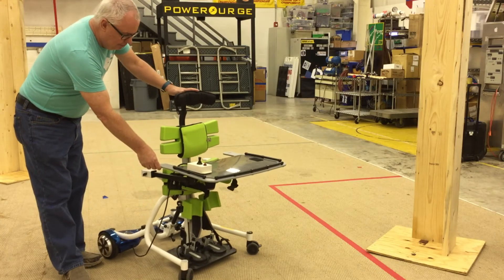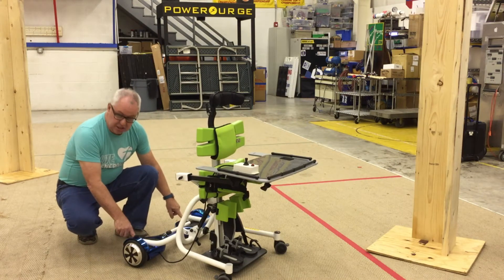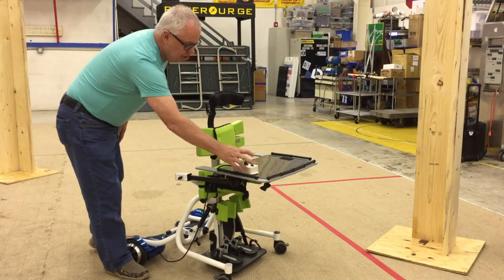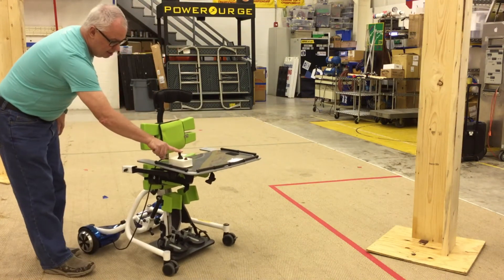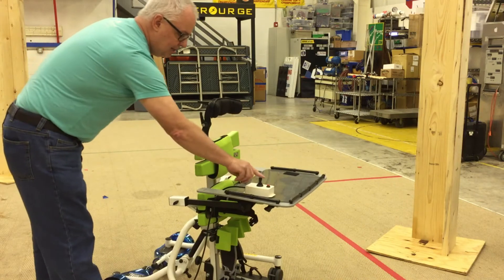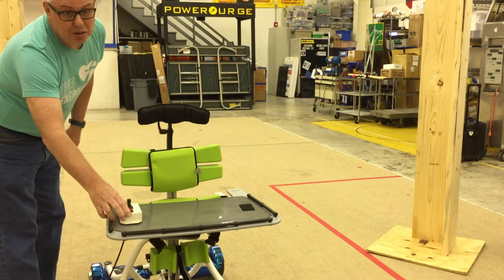For this prototype I've taken a commercial child stander, removed the casters from the back and bolted the hoverboard on using the mounting brackets that I've integrated into the design. It has a wide joystick. I can turn the unit on and now it responds to basic joystick commands. The speed and power can be adapted to the needs of the specific child.